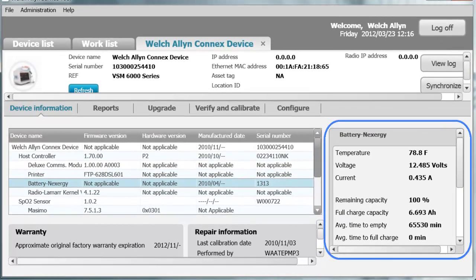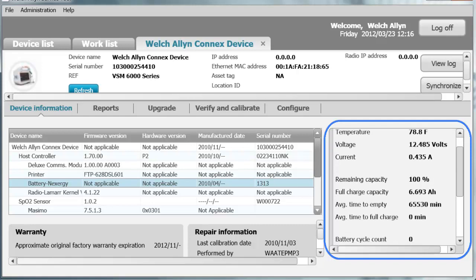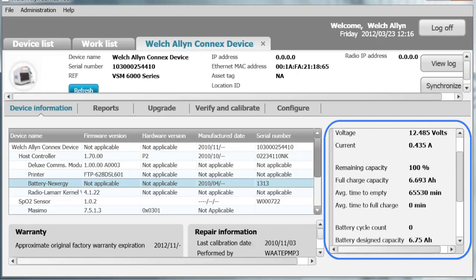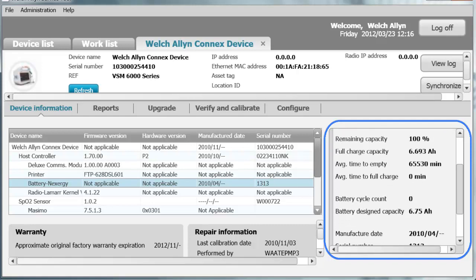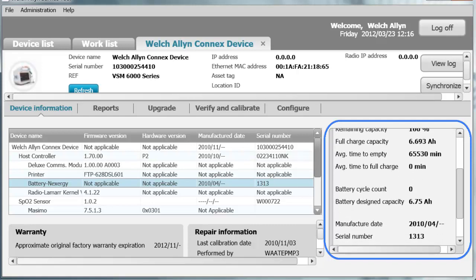When you click on Battery, you can see all of the important information related to the battery and battery usage: the temperature, the voltage, the amperage, the remaining capacity, the full charge capacity, and the average time to empty. New devices will always say 65,530 minutes until you conduct an average of three discharge cycles. As it takes an average, this number will change, along with the average time to full charge.